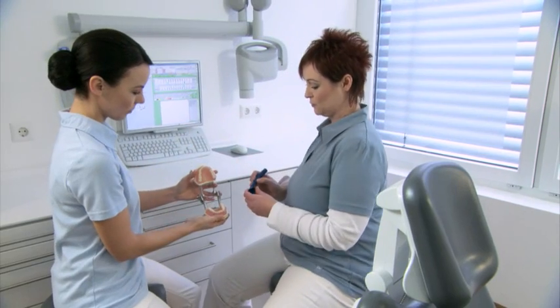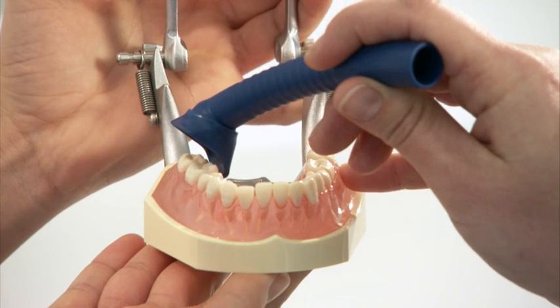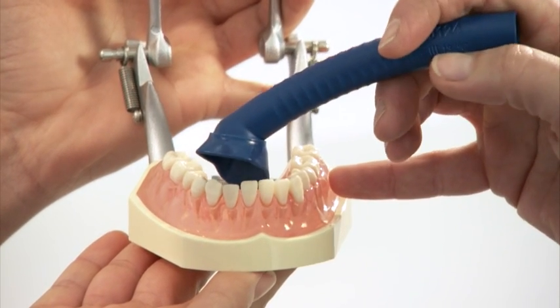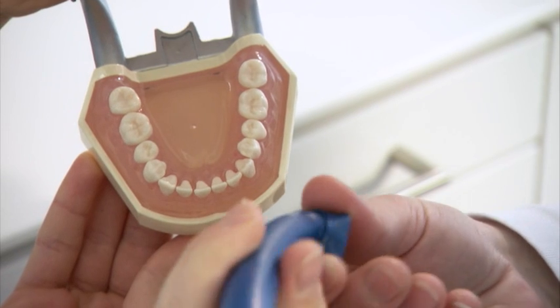Using the Prophylaxis cannula on dental models shows the exact arrangement of the cannula and the protective shield in all treatment positions. The distinct side of the rotating protective shield is always towards the gingiva during aspiration.